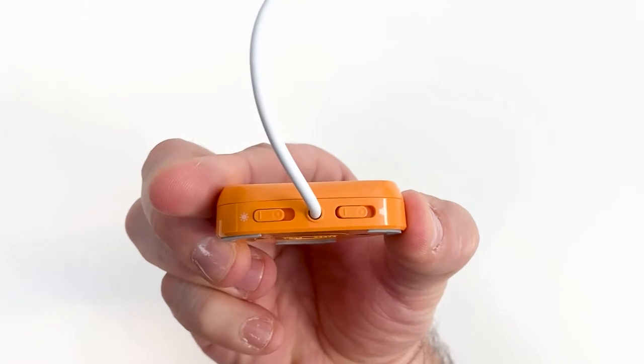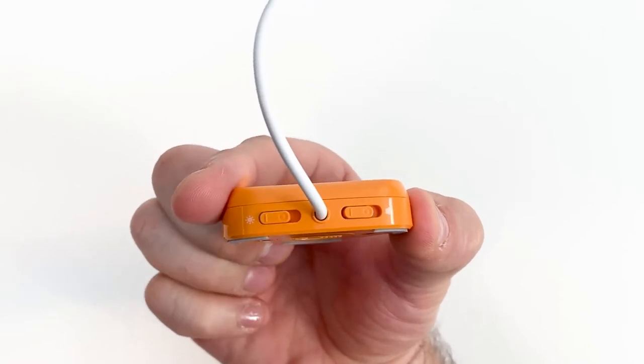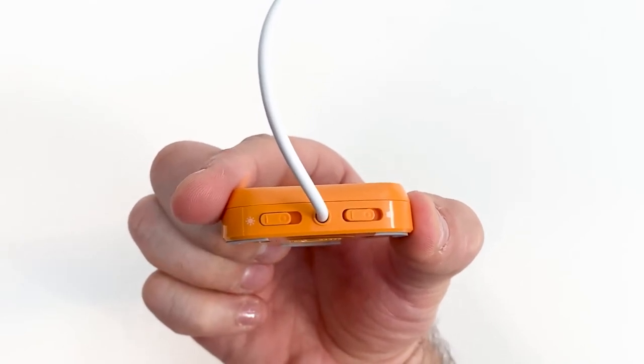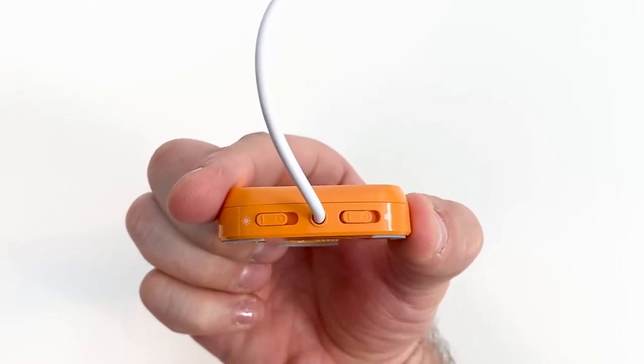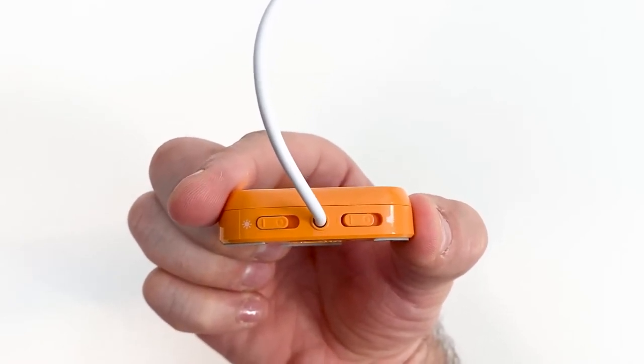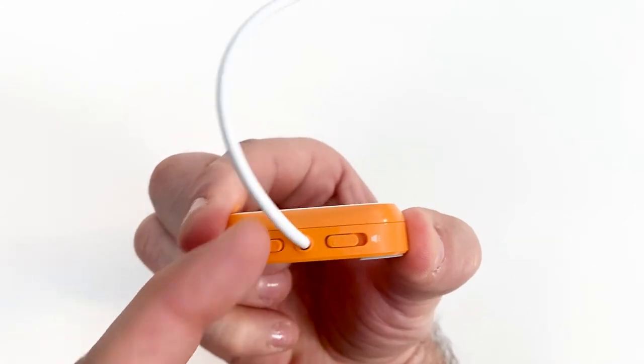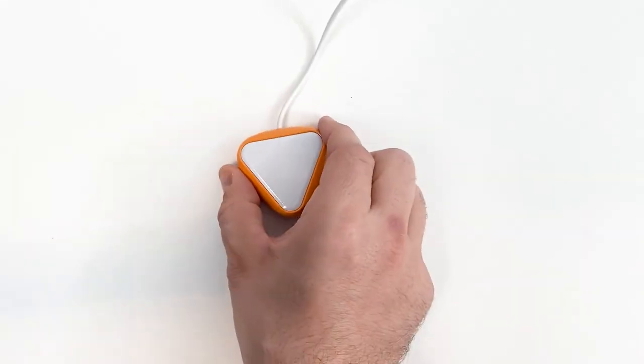The toggle switch for visual feedback has a light icon next to it. Move the toggle switch to turn the visual feedback on or off.